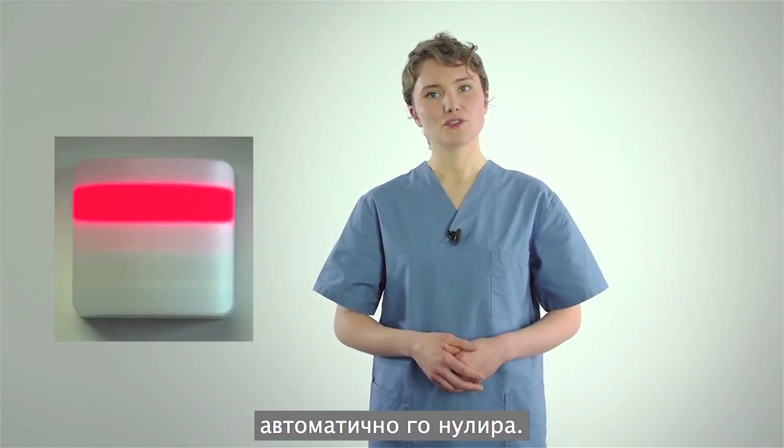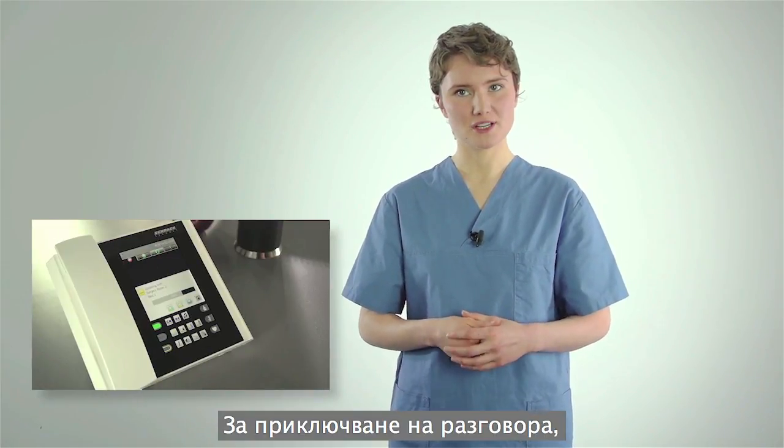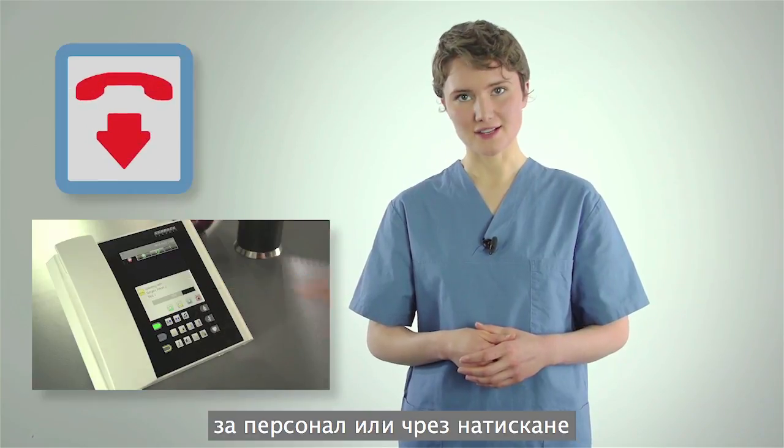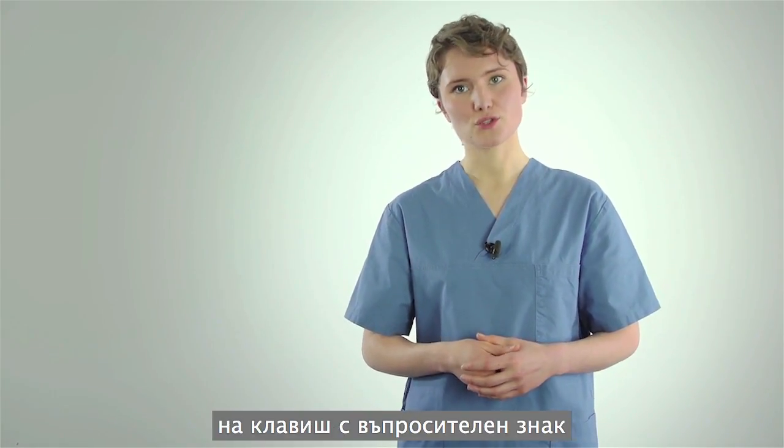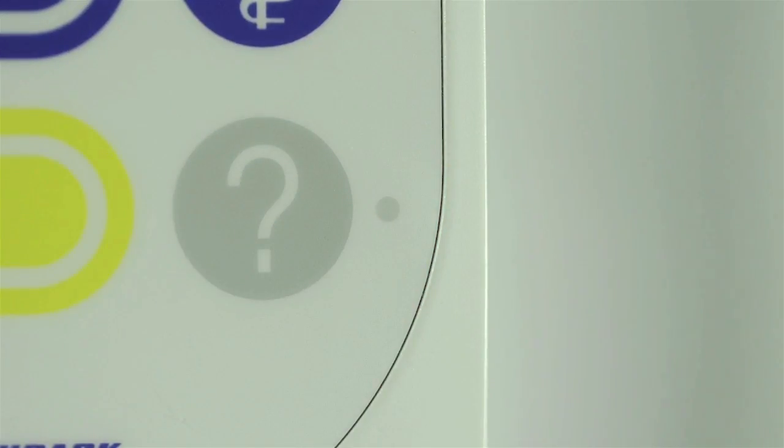Answering the call automatically resets it. You can end the call by pressing this symbol on the staff terminal or by pressing the question button a second time on the communications terminal.